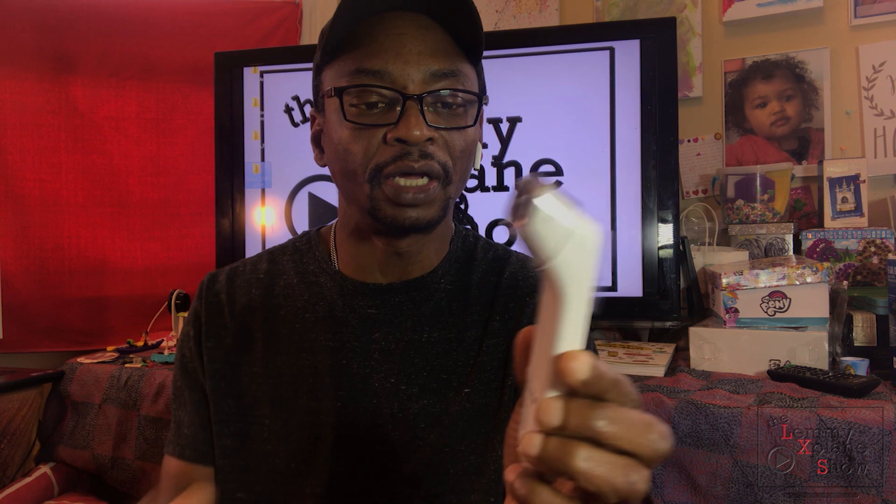And that's the thermometer right there. I haven't set it up yet, but I'm going to talk about the physical aspects of it and what I think on the onset. It comes with a protective cover that you obviously have to remove.